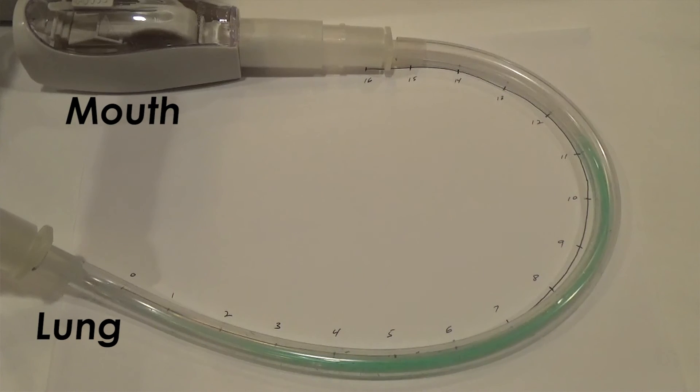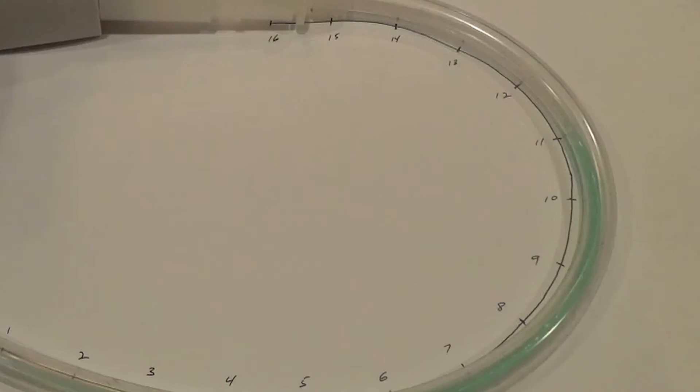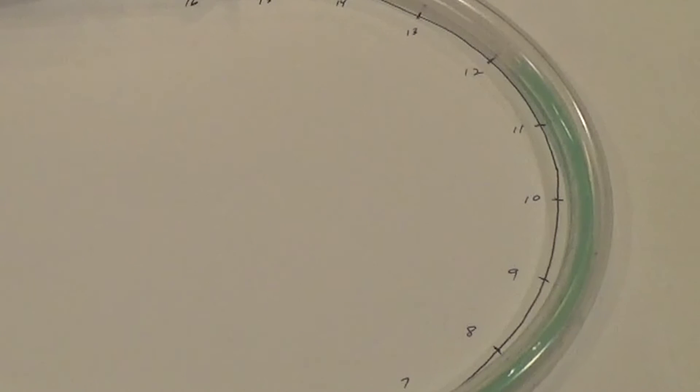With its small, compact design, the VPEP has much lower dead space, so less air needs to be pressurized. This allows the VPEP to be functional at a much lower breath size compared to other products.